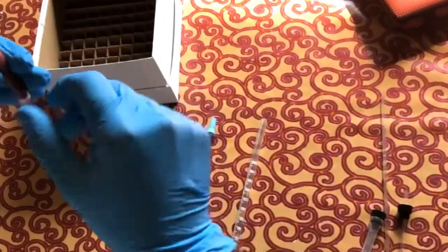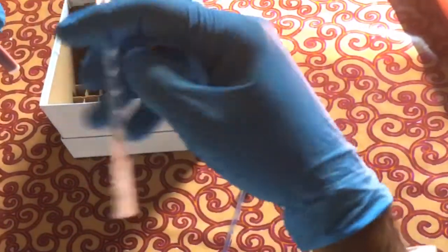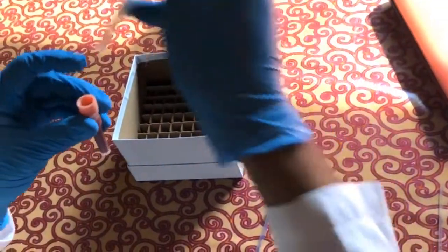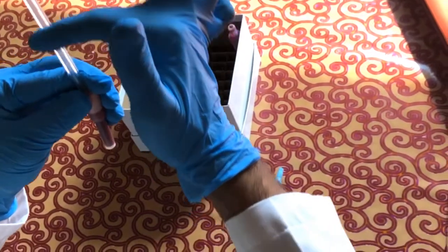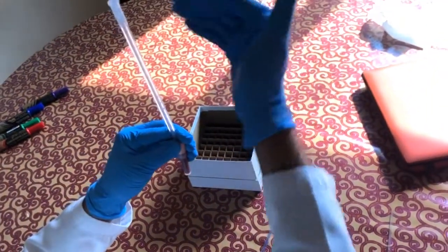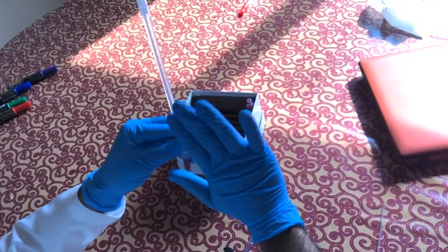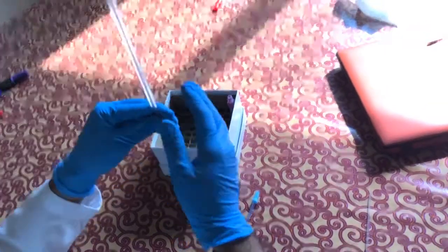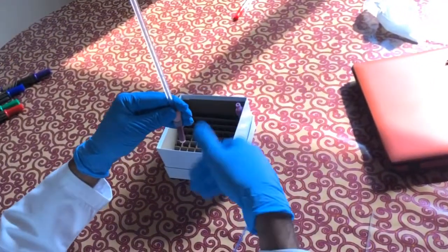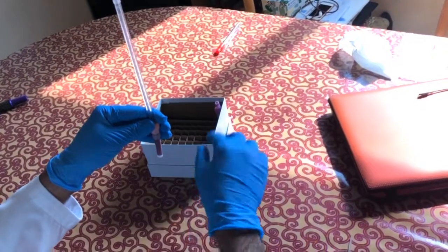After doing that, when it is completely ready as such and it has sedimented in this form, it is down, we will take our ESR tube and push it and let the blood flow till the above line, and then leave it for 1 hour, and after 1 hour we will see the reading. If it goes below as per our normal ranges, we consider the patient as not suffering from any inflammation or infection, and if there is anything as such, then we will consider the patient is having an inflammation or infection.